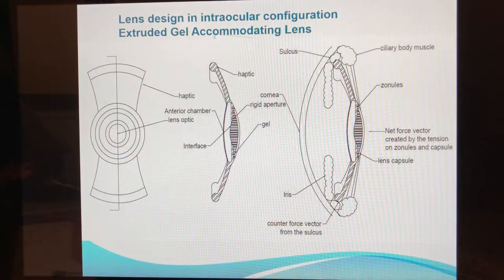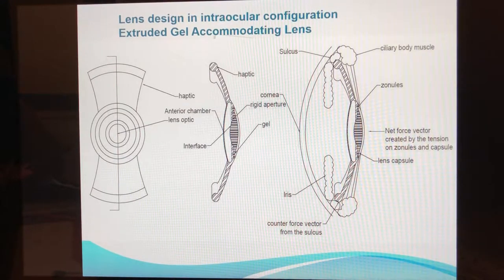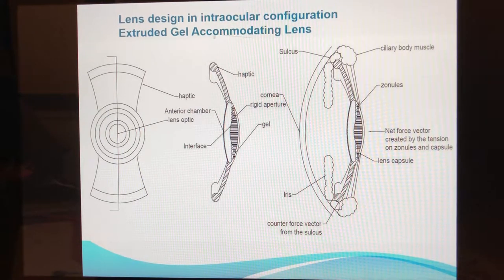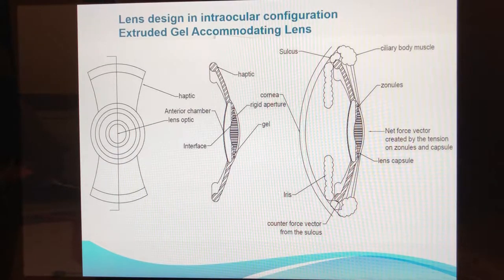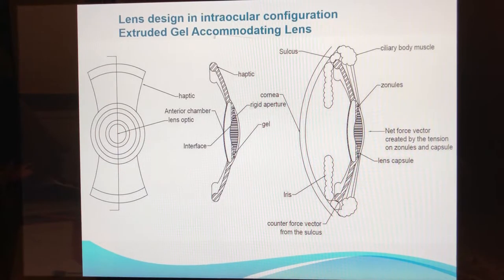Design concepts shown in intraocular configuration here are based upon the in vivo proven new lens concept, where zonular tension creates an anterior vectored force to extrude a gel through a circular aperture, creating a lenticular deformation directly proportional to the force applied. This design reverses the feedback by using a bicameral chamber with a high refractive index fluid in the anterior chamber. Therefore, when the zonular tension extrudes the gel through the aperture, it reduces the power of the lens, allowing for distance focus just like our natural physiologic accommodative process.